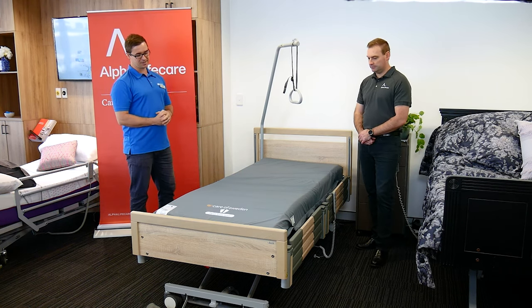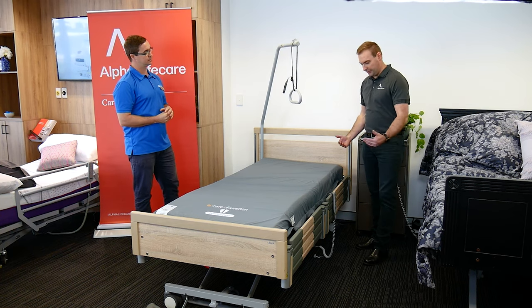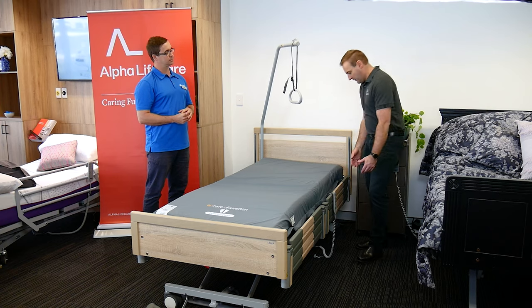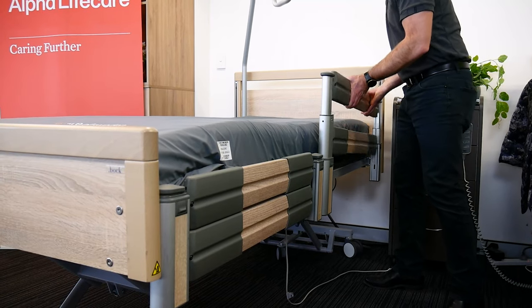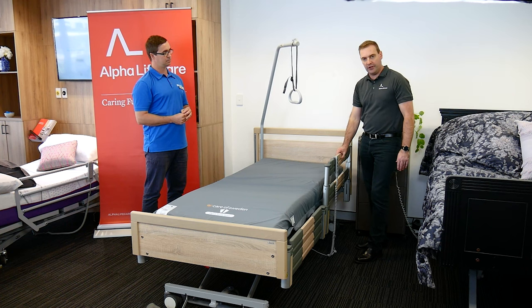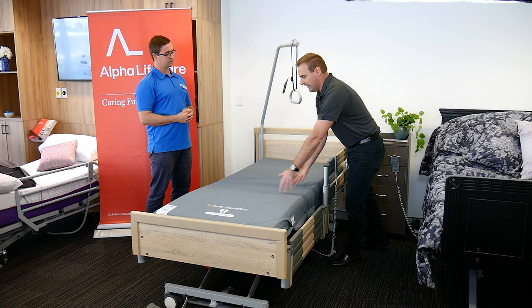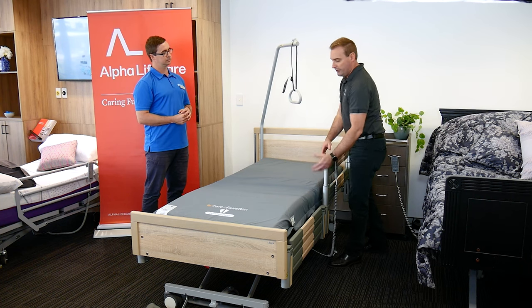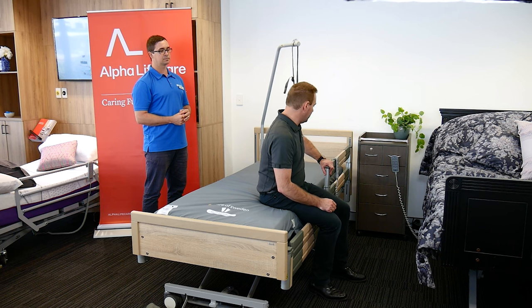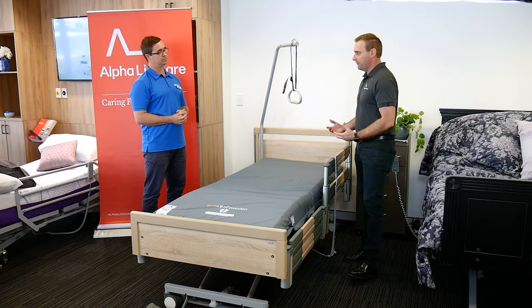The unique thing about this bed is that the side rails are actually a divided rail. We have a rail that can come up and locks in. The good thing is that can be the only rail you use, still allowing the client to get in and also to get out of bed. When getting out, once they're sitting on the side, they have something solid they can hold on to and push up off, therefore also minimising falls.